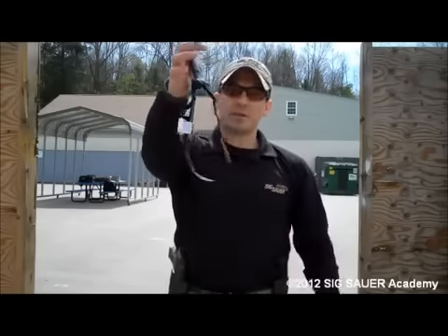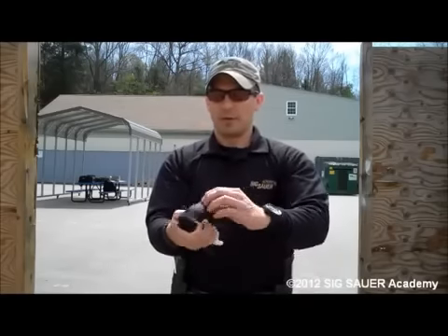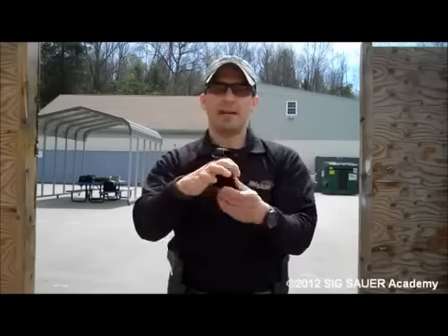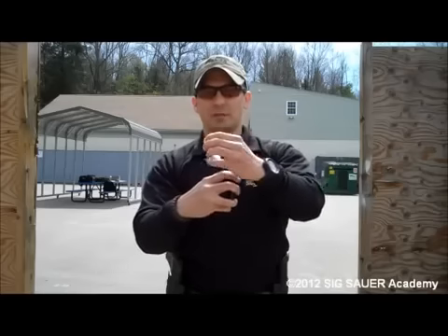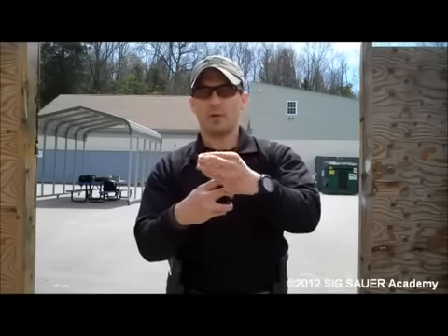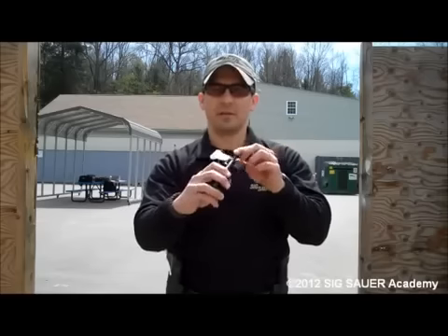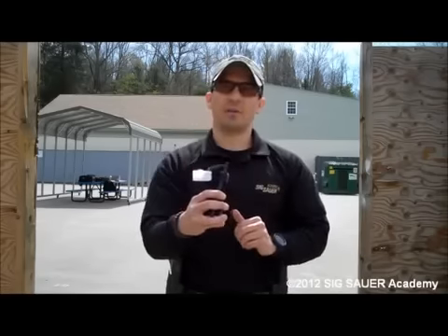Press the hook and loop together to form a handle. When you've got this, you can slip it over your arm or a leg pretty quickly and easily. Fold the slick end over, then the hook and loop end over, and you've got your tourniquet staged. Also, ensure that the windlass retention strap is back over and secured on the other side of the windlass retention clip so that it doesn't impede the movement of the windlass going into the clip to secure the tourniquet in place.